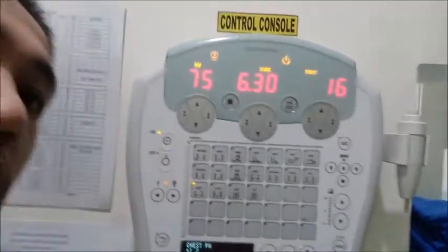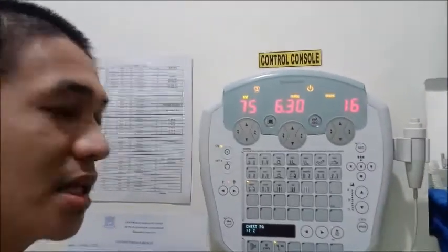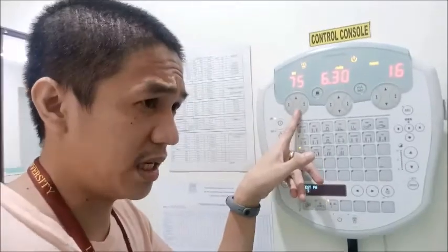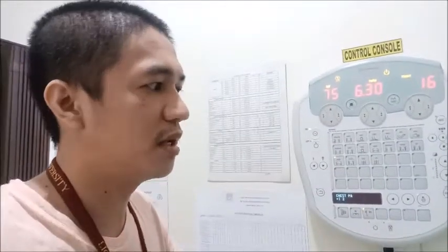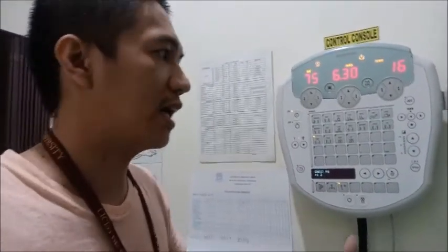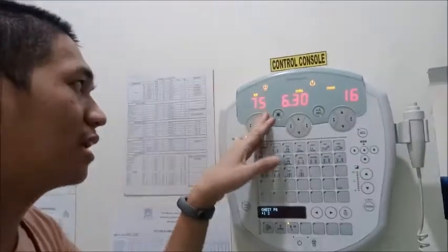So that is the mAs. Okay, so that is for the average build of patients, 75 and 6.3. Since we are dealing with conventional, the factors can sometimes be affected by the age of the chemical. For example, if you just changed the chemicals, they are new, so these factors may be adjusted to a lower setting, especially the kVp. And if the chemical is already too old, for example in 1 month you have 500 patients, then the action of the chemical will be much lesser compared to its action on the first day. So the factors will increase. Okay, so this is the average.